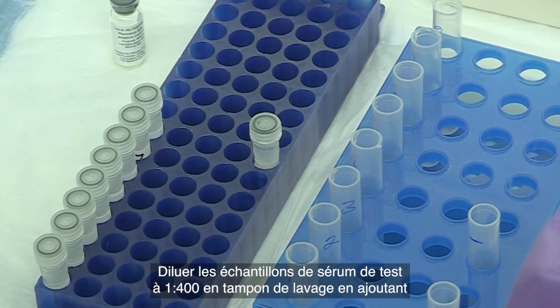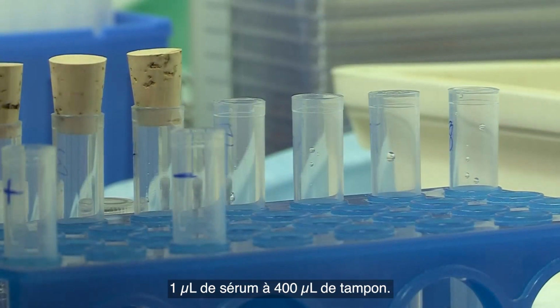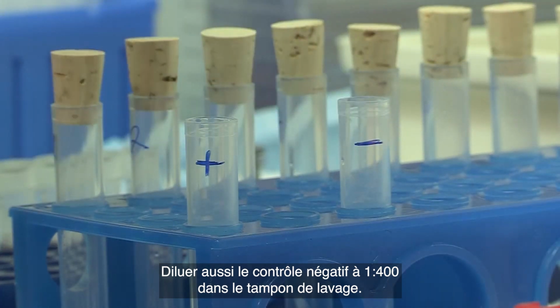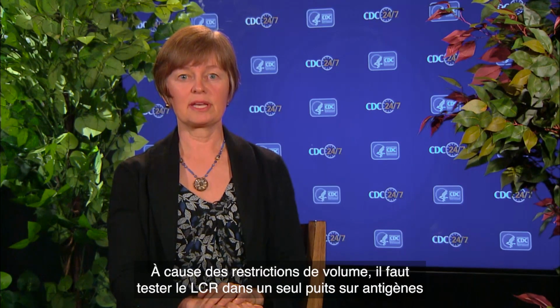Dilute the test serum samples 1 to 400 in wash buffer by adding 1 microliter of serum to 400 microliters of wash buffer. The negative control should also be diluted to 1 to 400 in wash buffer. If cerebrospinal fluid is the test sample type, it should be used undiluted or a maximum dilution of 1 to 5, and a negative CSF control should also be placed on the plate at the same dilution as the test specimen. Due to volume restrictions, it is reasonable to test CSF in a single well on viral and normal antigens.